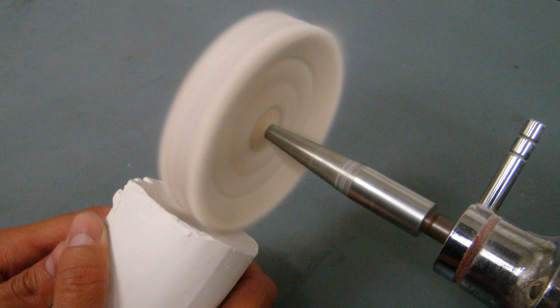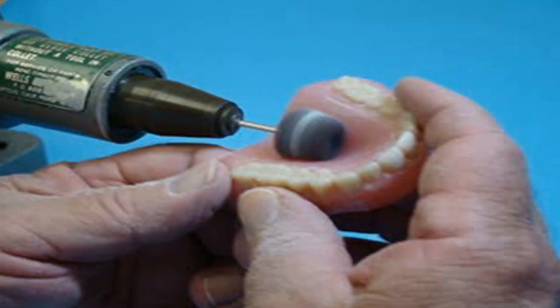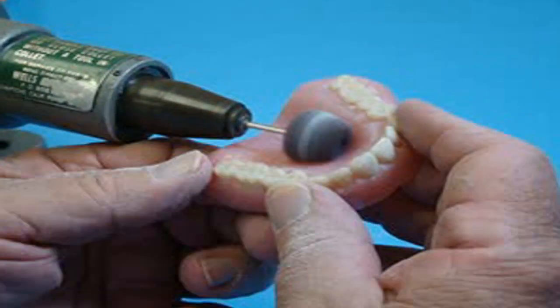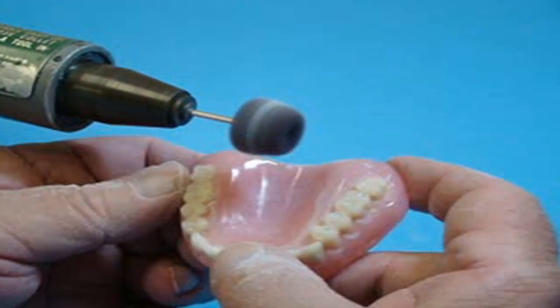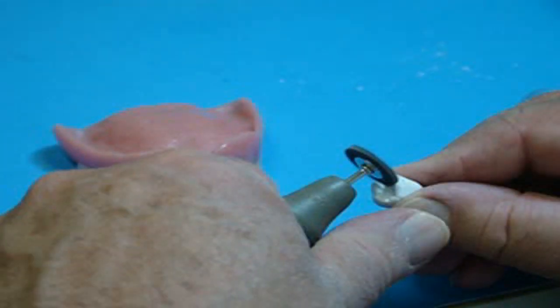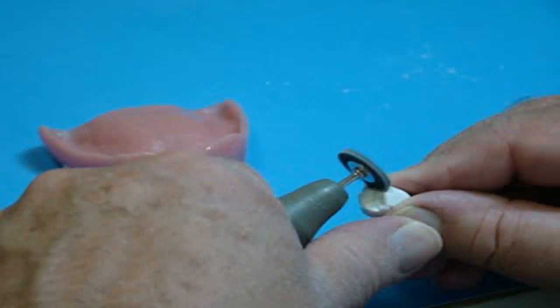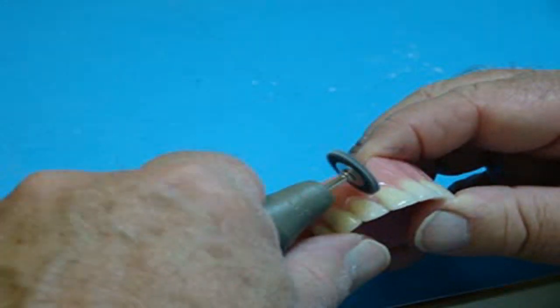Based upon its ability to be used without being mixed with water, all final finishing and polishing can be accomplished at the normal working area with no overspill, flying contaminants, or cross-contamination. Individual bits — use one for each individual repair case and then discard the remainder.